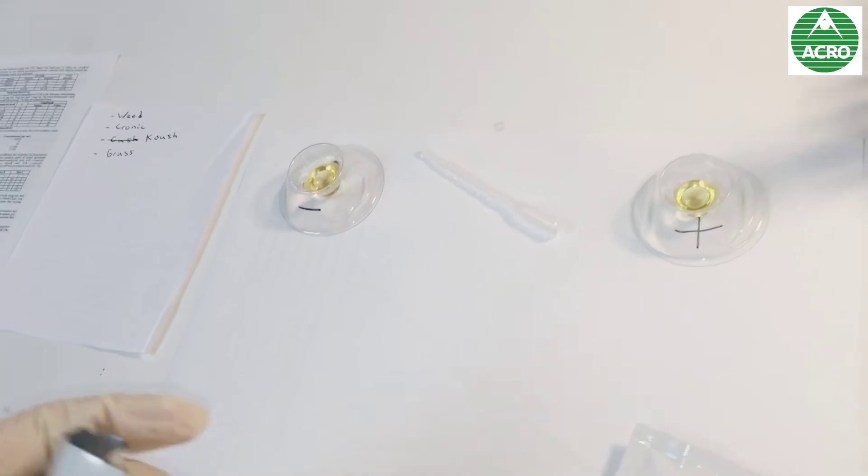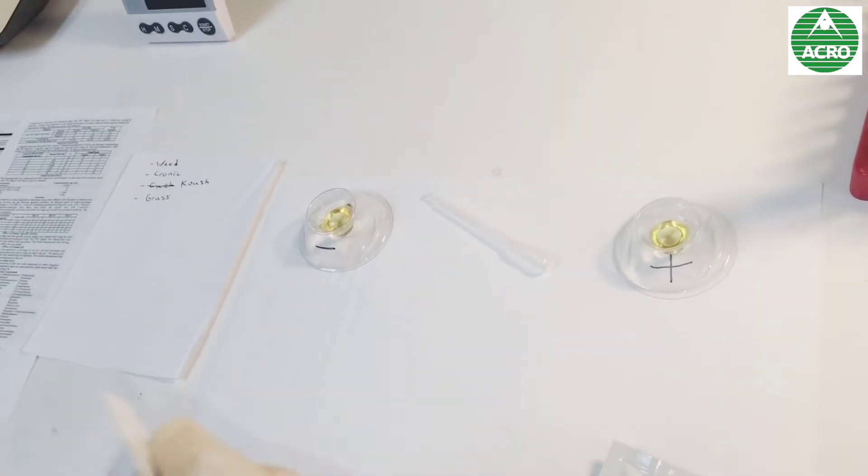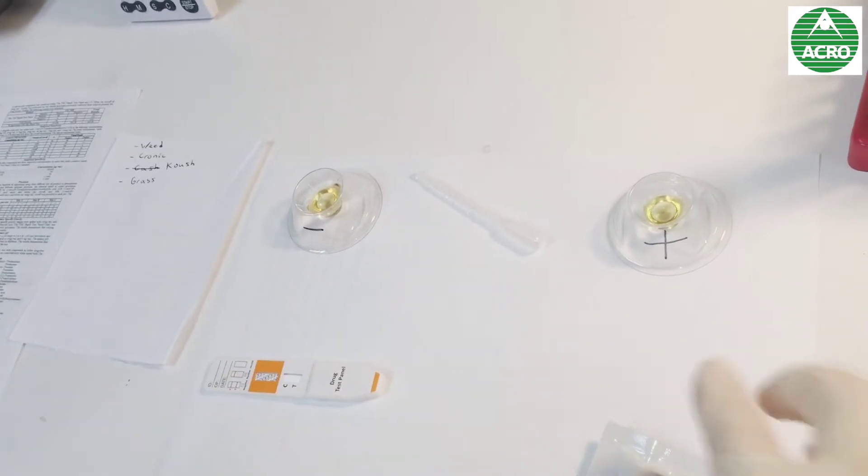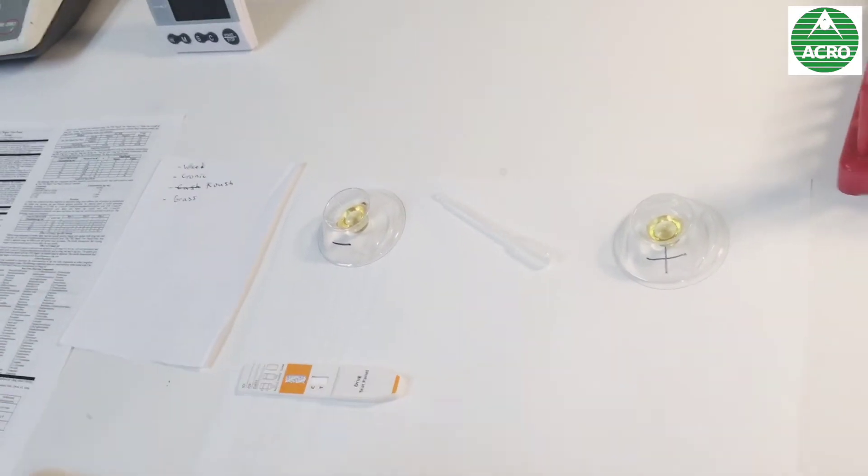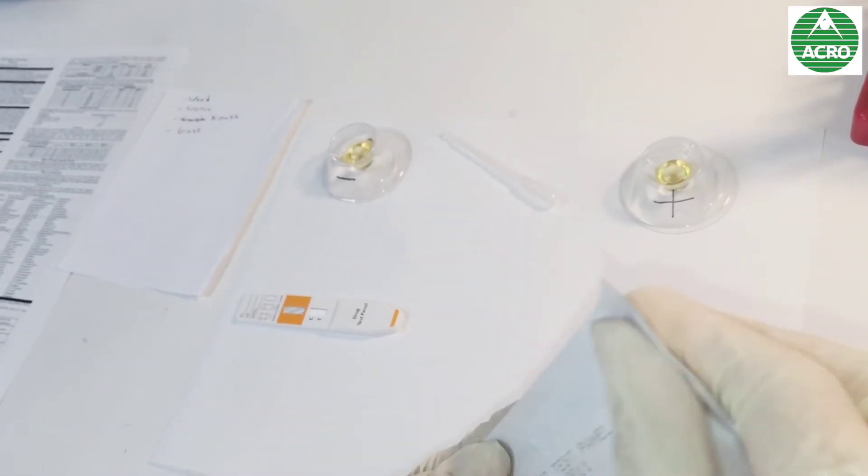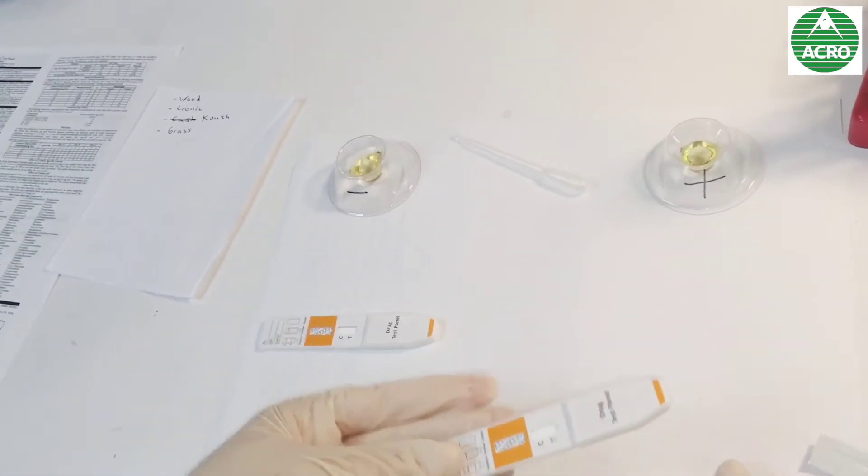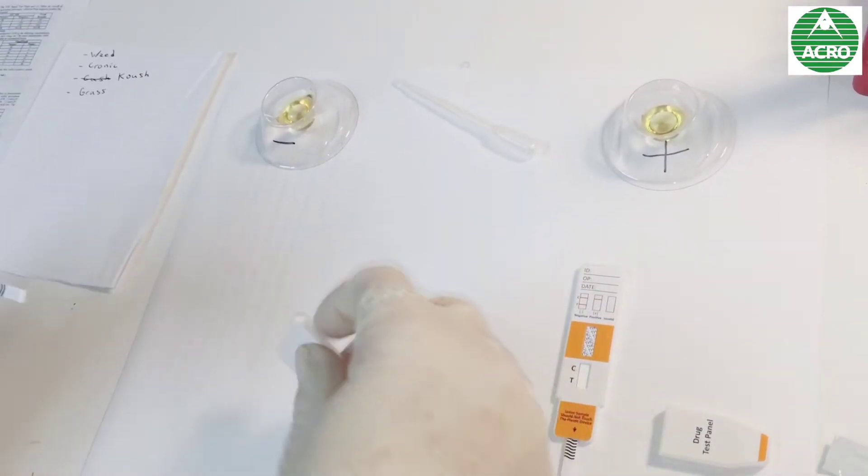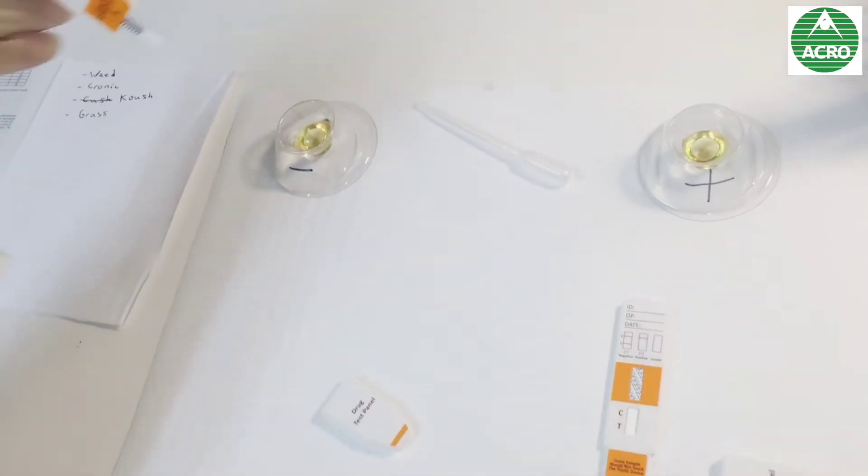We're going to try twice, first of all with negative urine and then with positive urine. So I have two panels. I open both of them and let's start with the negative.